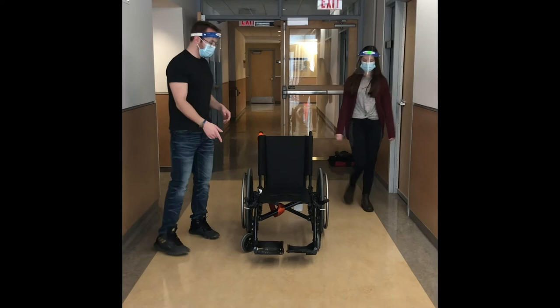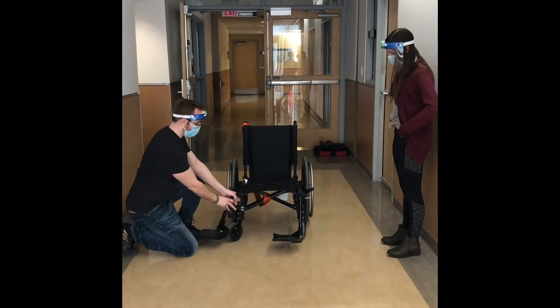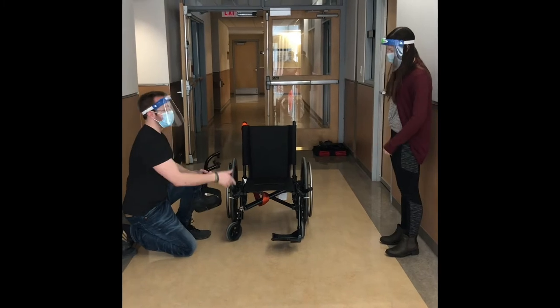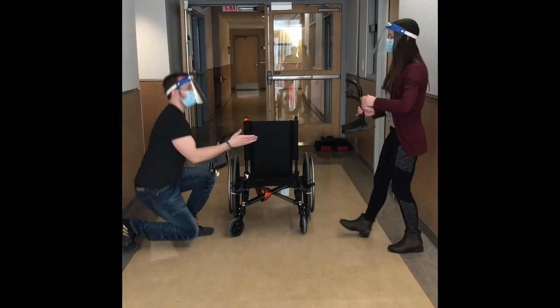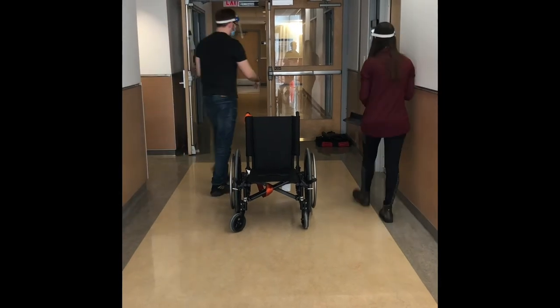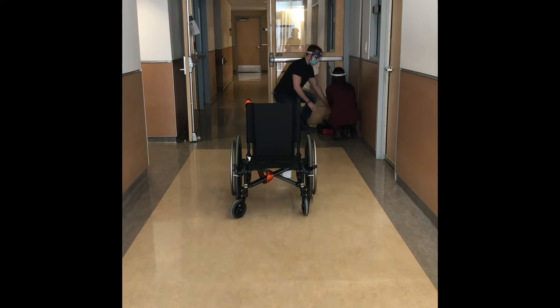Next up, we'll go for the foot pedals. Foot pedals are the same idea — we're going to click this little thing right here, turn it to the left, and up it goes, just like that. You try that. See, that's perfect — good body mechanics and knees, so no injury there. Put them over here in the same spot.